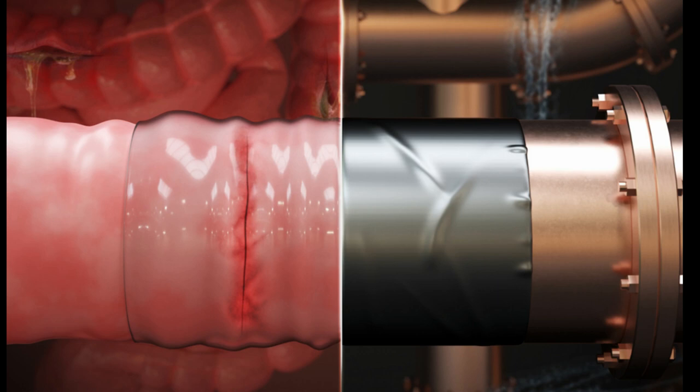But when consulting with surgeons, they realized that a single-sided version might make a more practical impact. Surgeons typically repair leaks and tears in the gastrointestinal tract with surgical sutures. But sewing the stitches requires precision and training, and following surgery, the sutures can trigger scarring around the injury. The tissue between stitches could also tear, causing secondary leakages that could lead to sepsis.